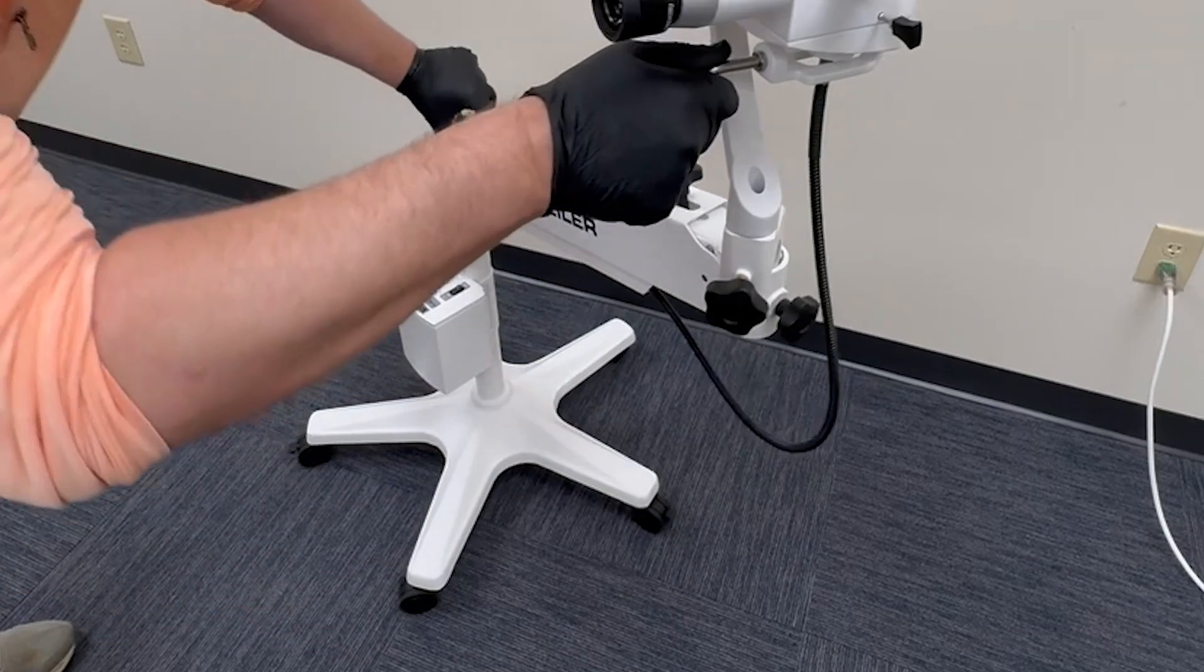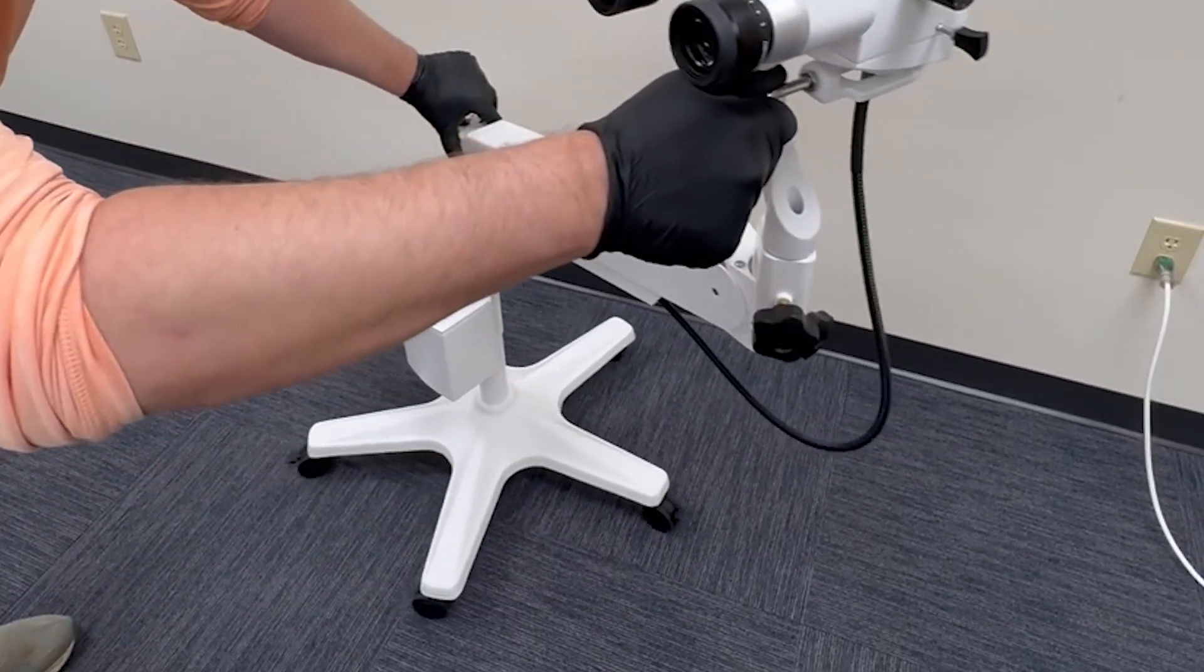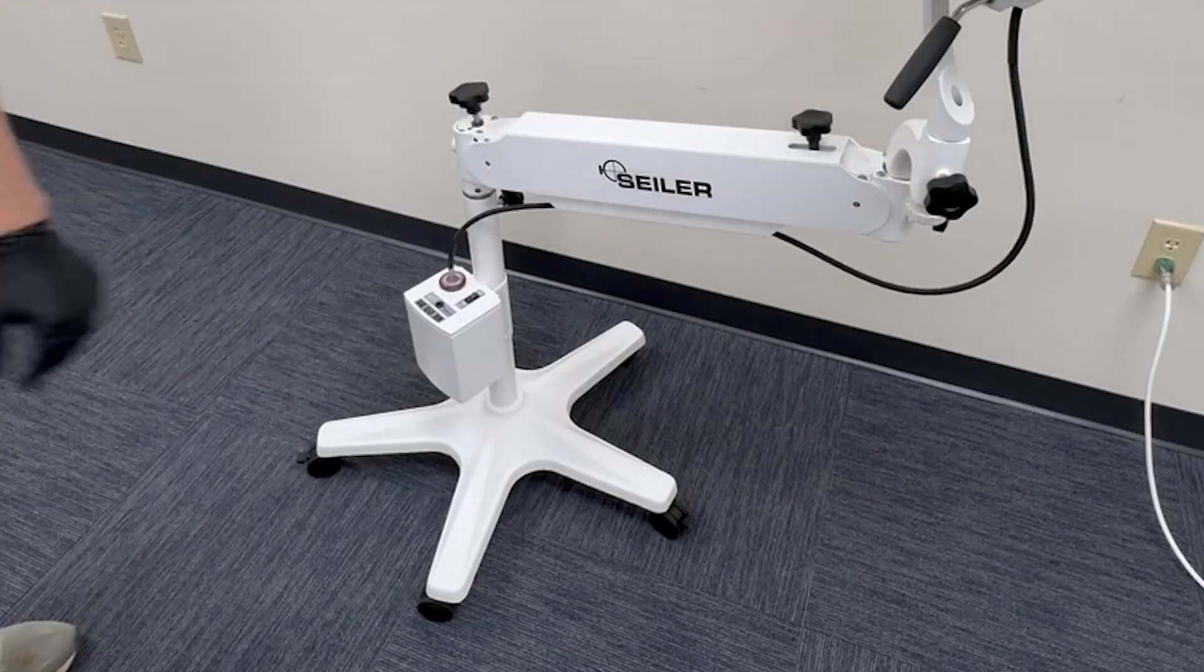With the casters unlocked, the Colposcope glides effortlessly across the floor, allowing for smooth and easy repositioning with just one hand.